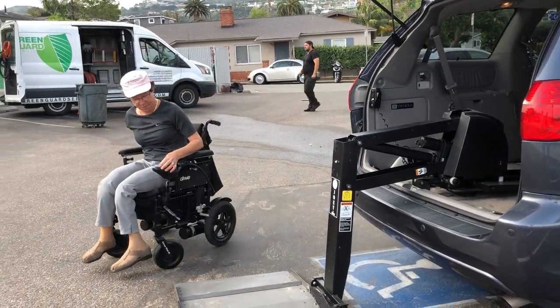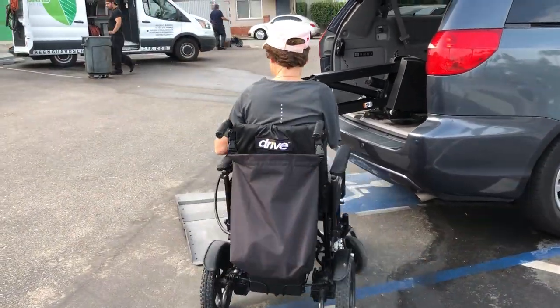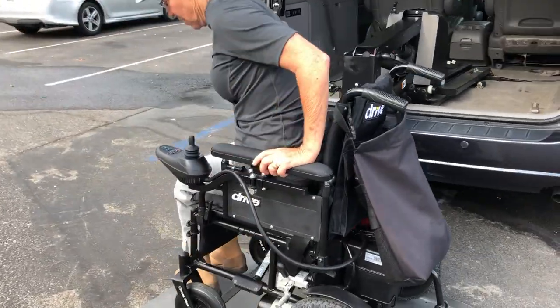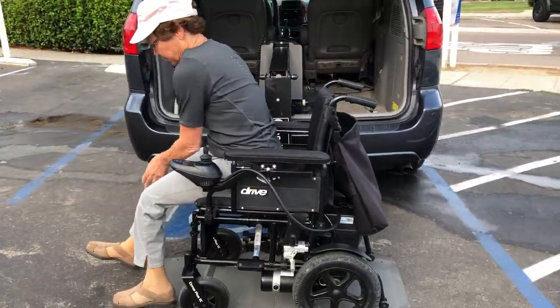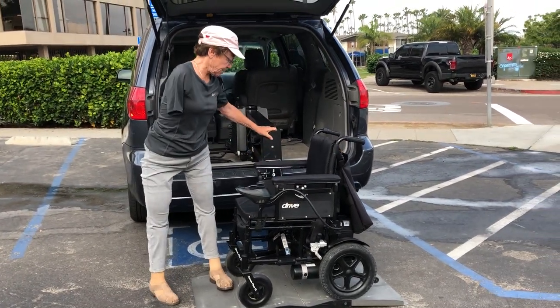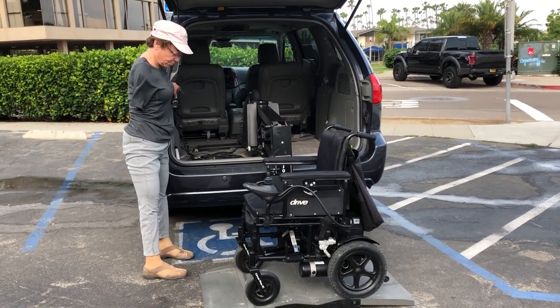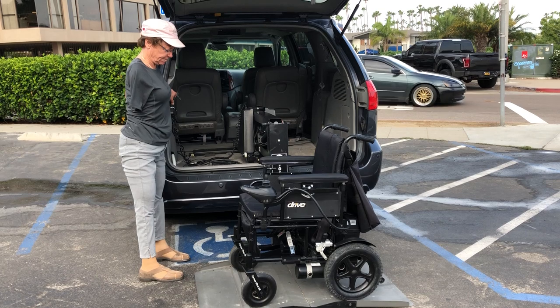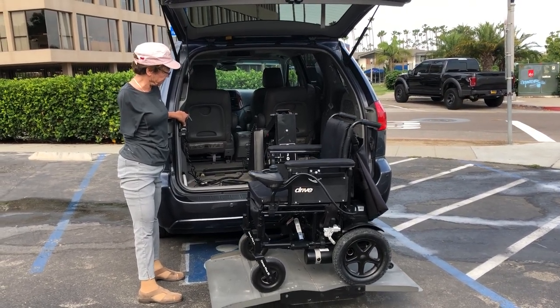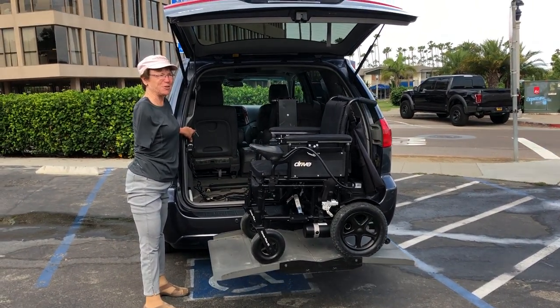I have to drive around the other side because it has a stop on this, right here. Let it roll off, turn it off, and then I stand back. Put my wheelchair and get my keys, and then let it come back in. I have to sing to myself — be very patient because it takes so long.